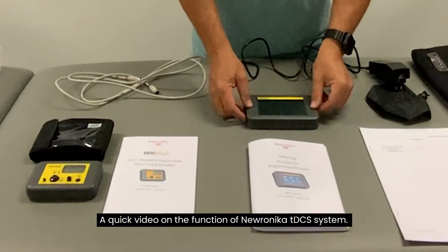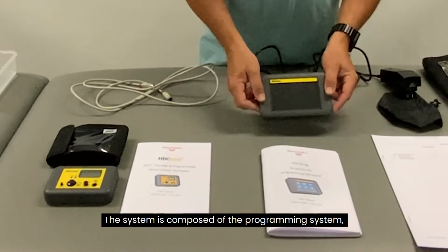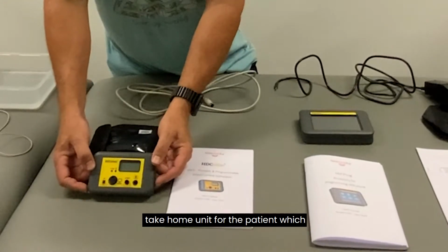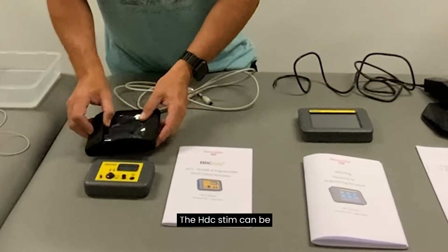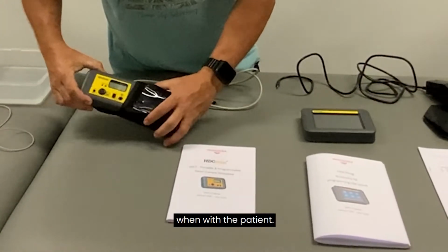A quick video on the function of the Newronika tDCS system. The system is composed of the programming system, called the HDC prog, and the take-home unit for the patient, which is called the HDC stim. The HDC stim can be placed inside the carry case, to protect the unit when with the patient.